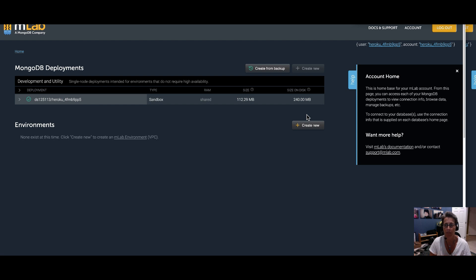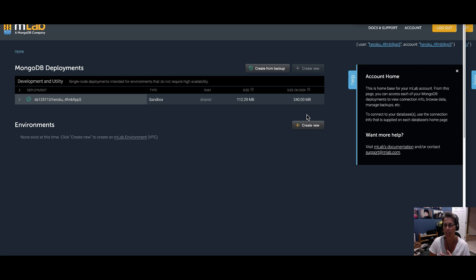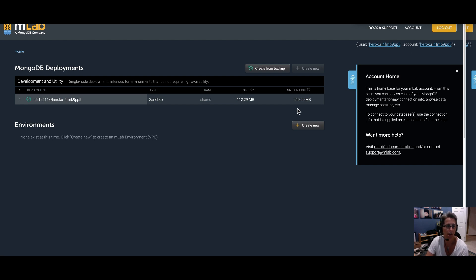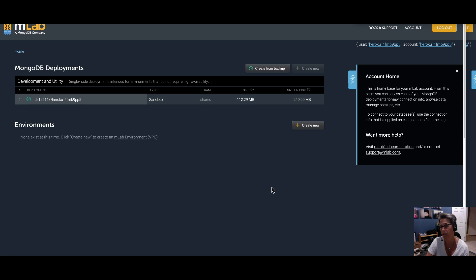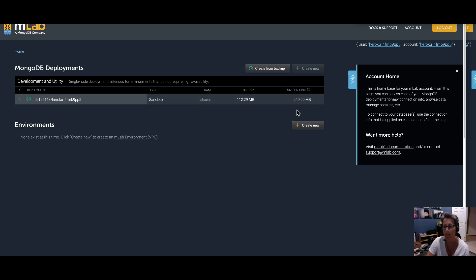So again, if you're having problems with CGM data not loading or other things kind of getting clunky in your Nightscout site, come on to your MLab, check your size and your size on disk. Clean out some of the grains of rice by deleting your device status collection documents. Clean out your size on disk, make them all get closer together, sweep them together, and you'll have a much happier Nightscout experience. How often to do this is probably the next question. I usually do it about every three months kind of randomly when I think about it. When we go to an endocrinologist visit, I sort of time it at the same time. That's usually when I think about it. So anyway, I hope that helps you guys. It's a pretty simple process. Not so bad. You just need to make sure that your size and size on disk are both nicely, not at 496. All right. Have a good one.